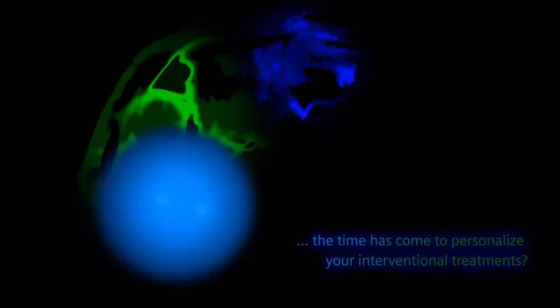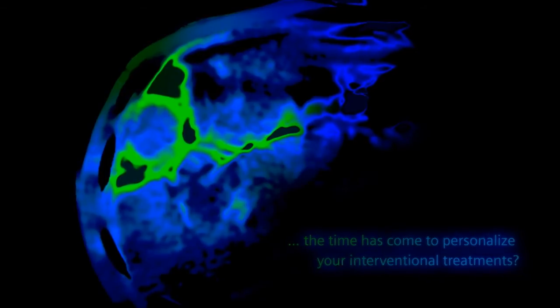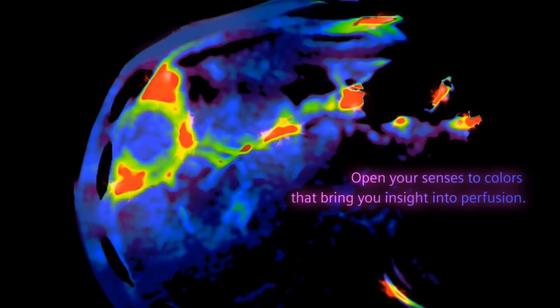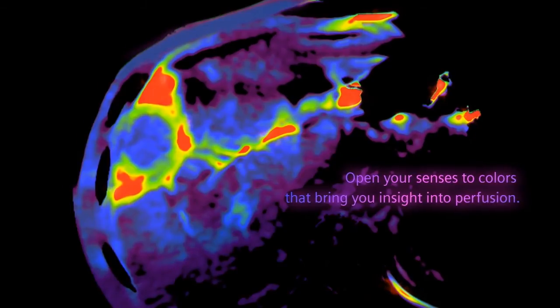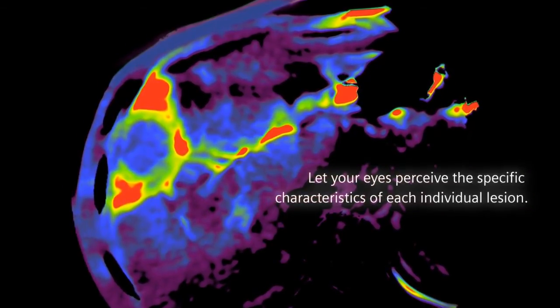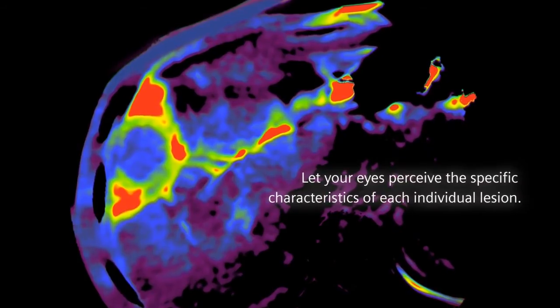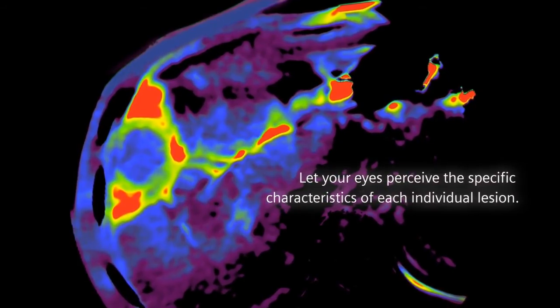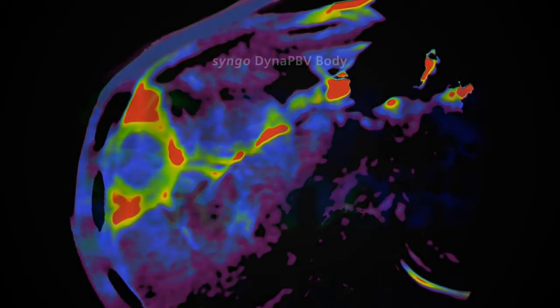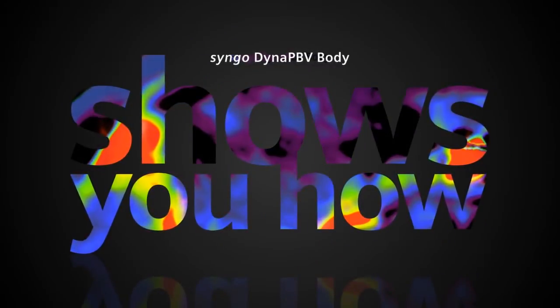The time has come to personalize your interventional treatments. Open your senses to colors that bring you insight into perfusion. Let your eyes perceive the specific characteristics of each individual lesion. Syngo Dyna PBV Body shows you how.